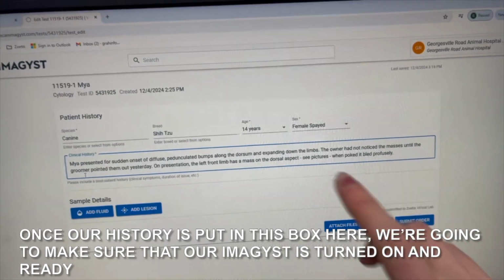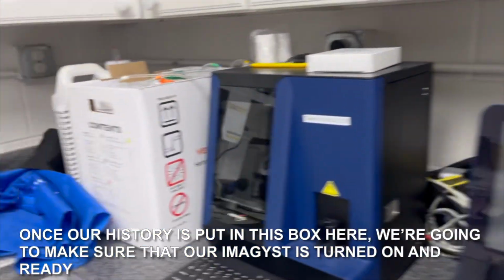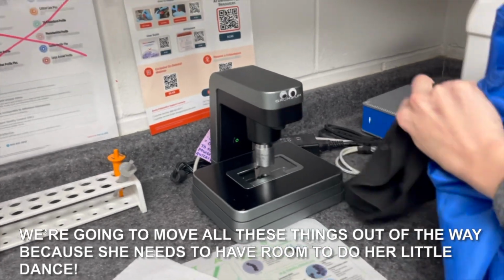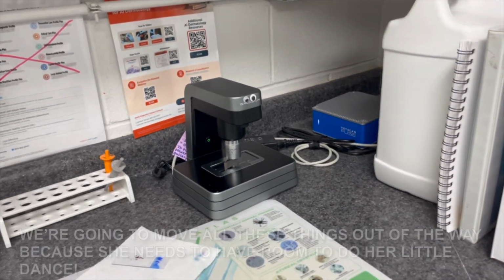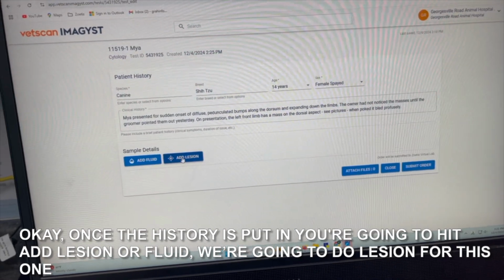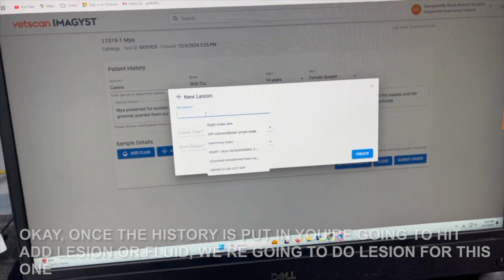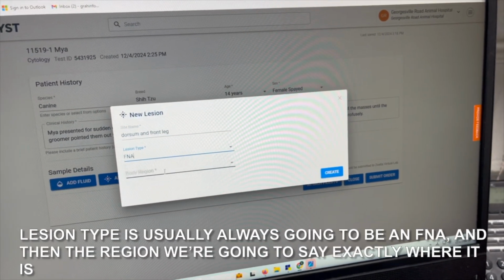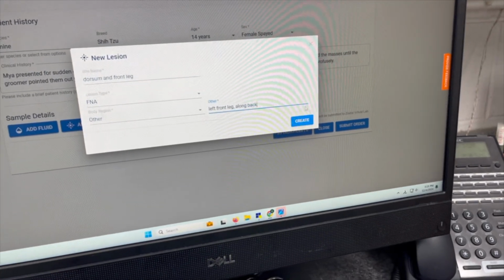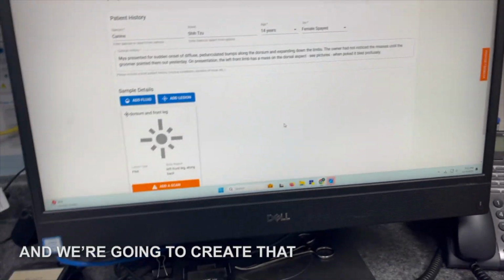Once our history is put in this box here, we're going to make sure that our Imagyst is turned on and ready. We're going to move all of these things out of the way because she needs to have room to do her little dance. Okay, once the history is put in, you're gonna hit add lesion or fluid. We're gonna do lesion for this one. Lesion type is usually always gonna be an FNA, and then the region, we're gonna say exactly where it is. And we're gonna create that.